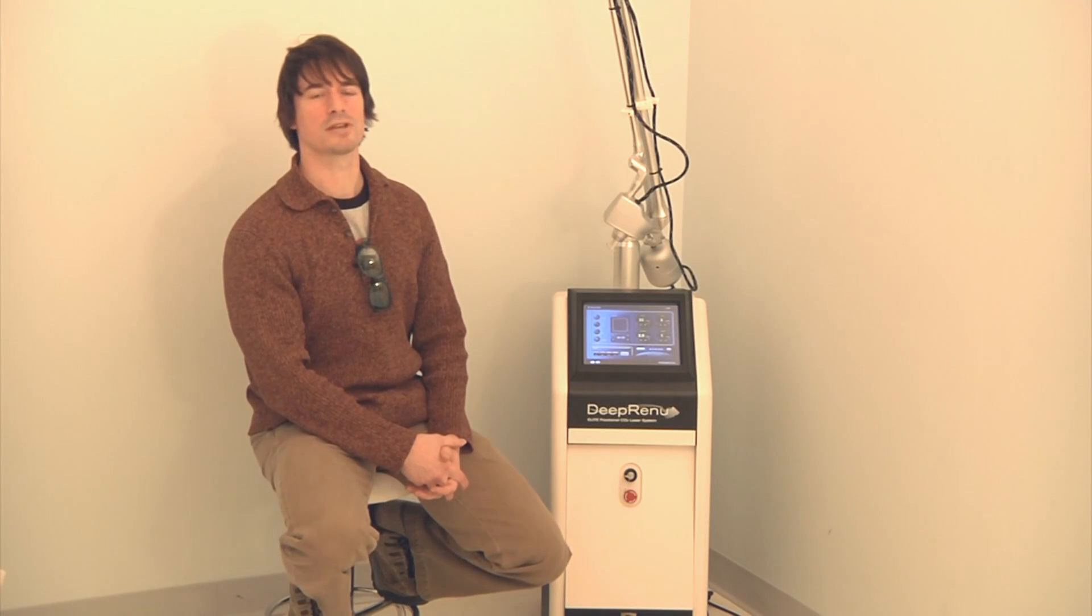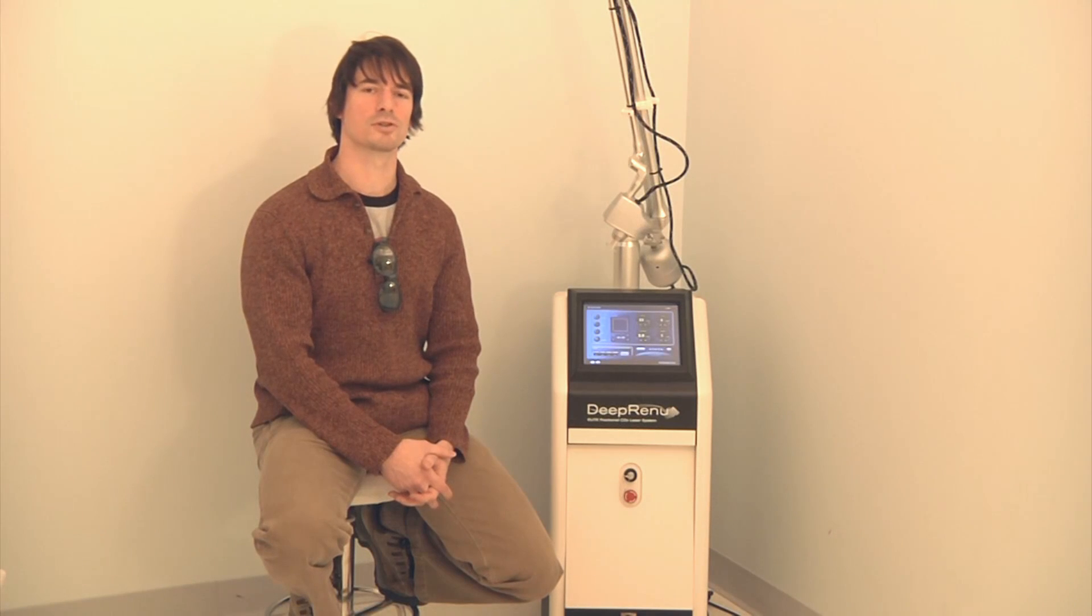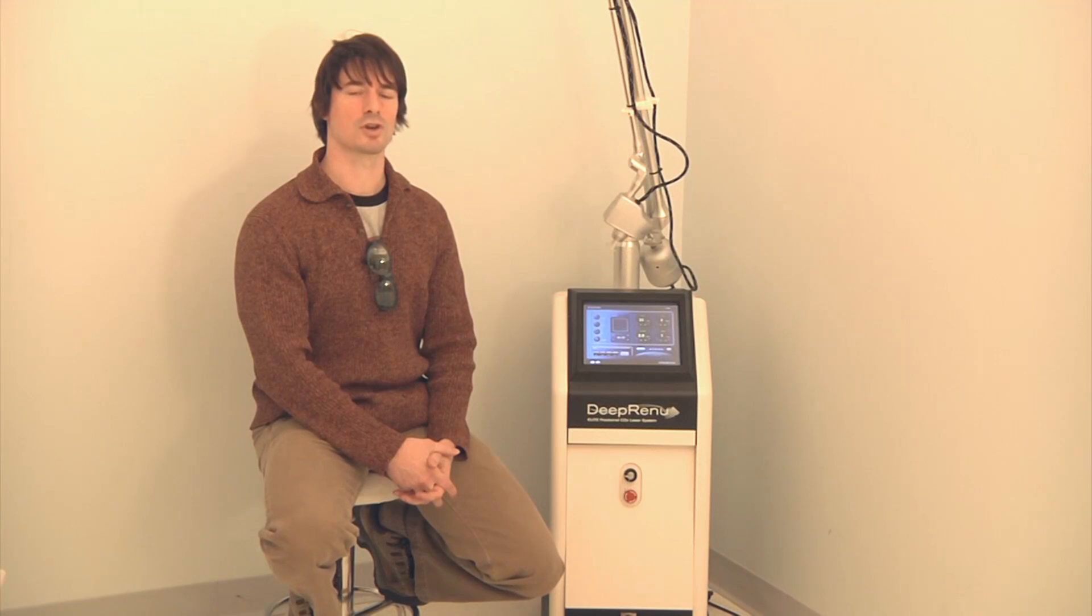However, CO2 lasers are also used in the cosmetic world for the purposes of skin resurfacing, the treatment of epidermal pigment, and scar rejuvenation.